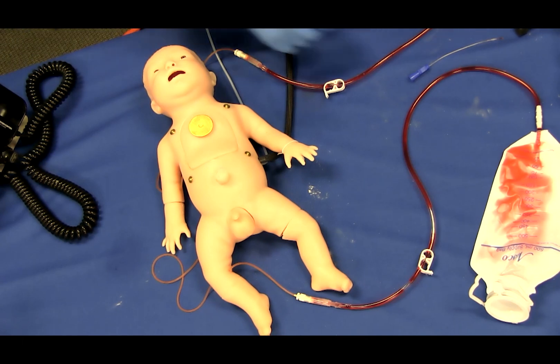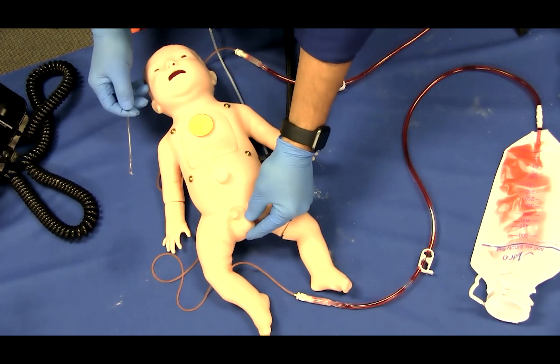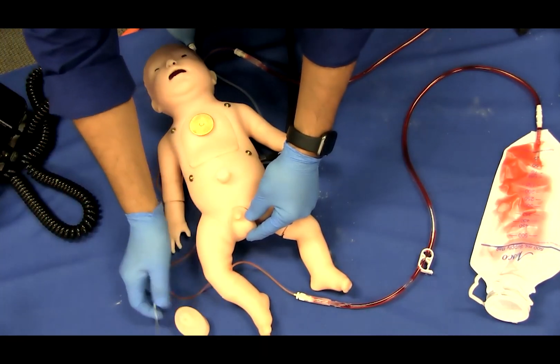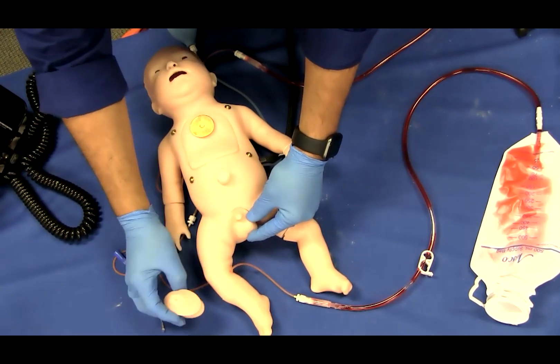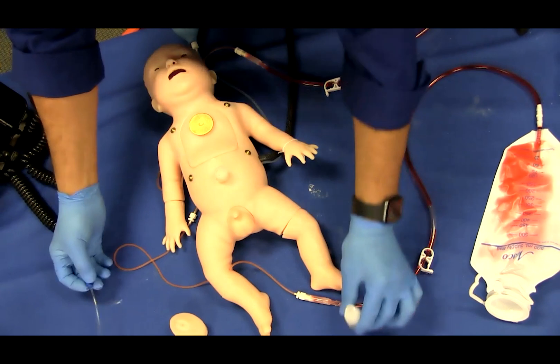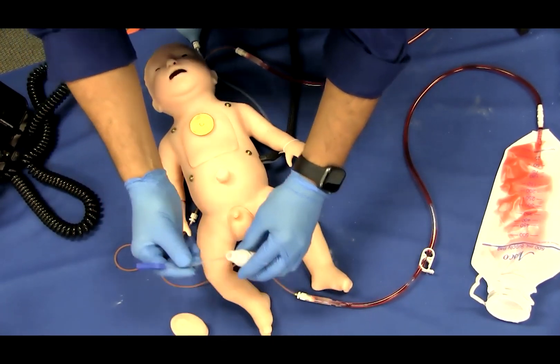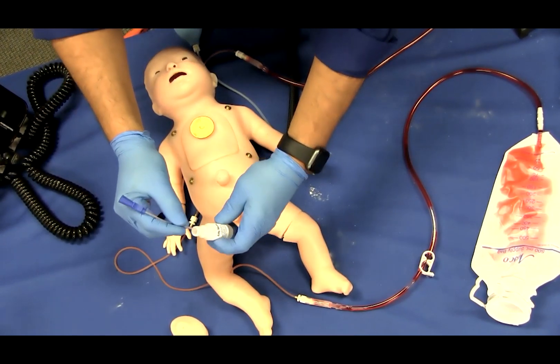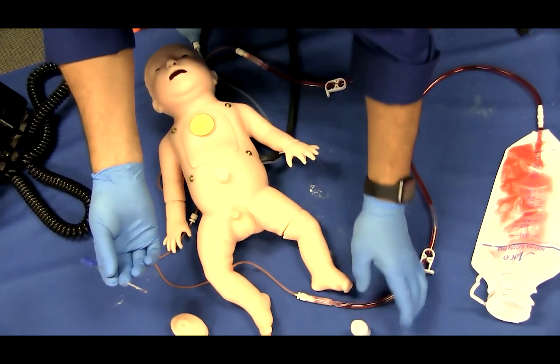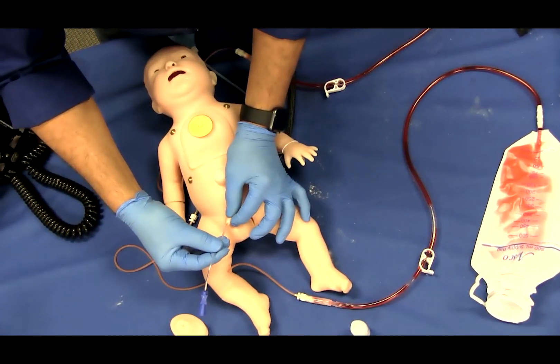Urinary catheterization. The interchangeable genital inserts are for catheter placement practice only and not designed to deliver or eliminate fluids. Select either the male or female genital insert and fit into the body of Charlie per previous setup instructions. Lubricate a 5 French straight urinary catheter and insert following institutional guidelines.